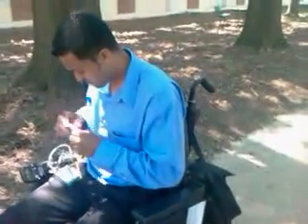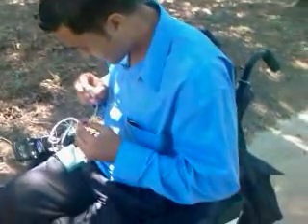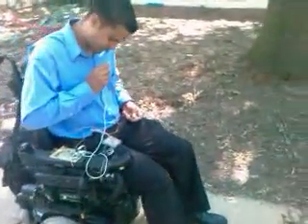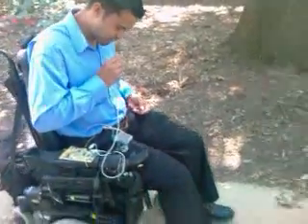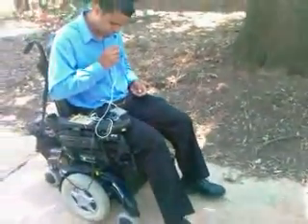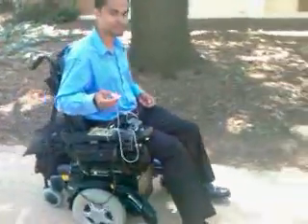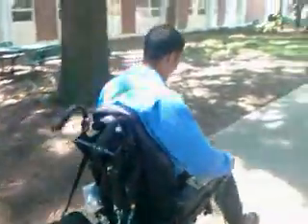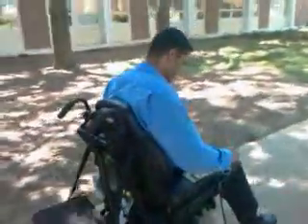Do a turn with humming. Control. Left. Go. Forward. Speed. Two. You can operate it better than me. Speed. Three.